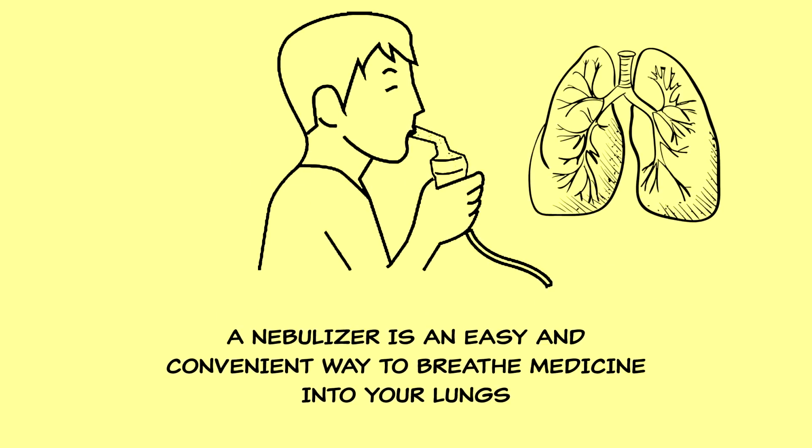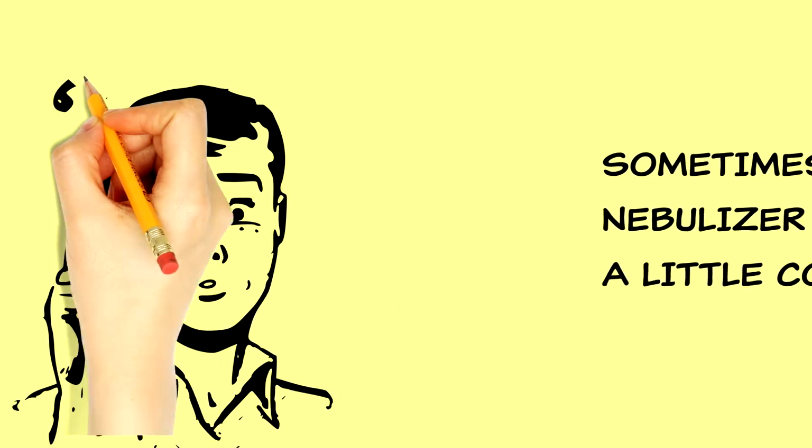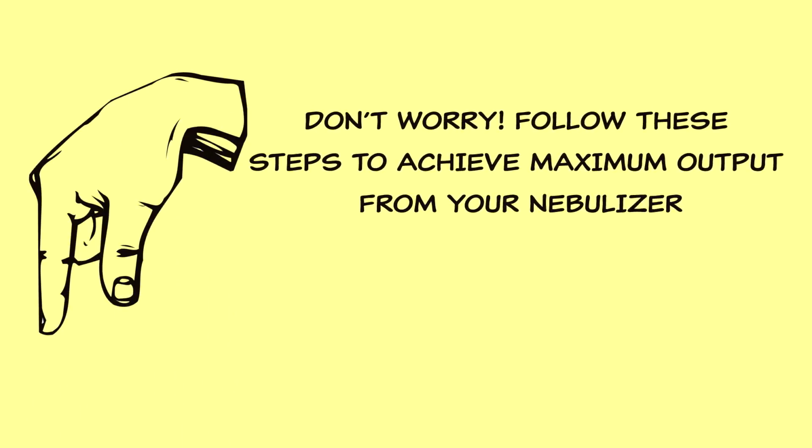A nebulizer is an easy and convenient way to breathe medicine into your lungs. Sometimes, using a nebulizer can be a little confusing. But don't worry, follow these steps to achieve maximum output from your nebulizer.